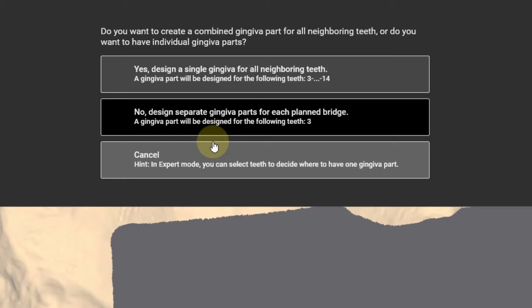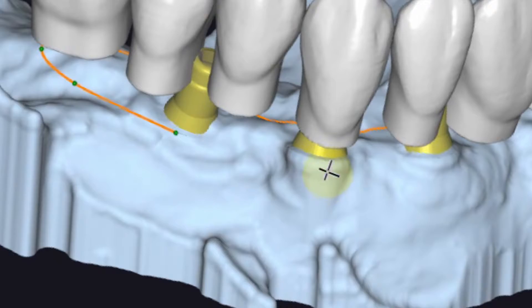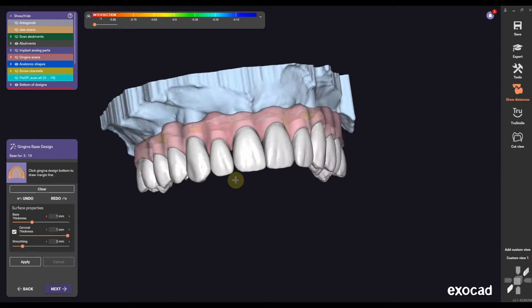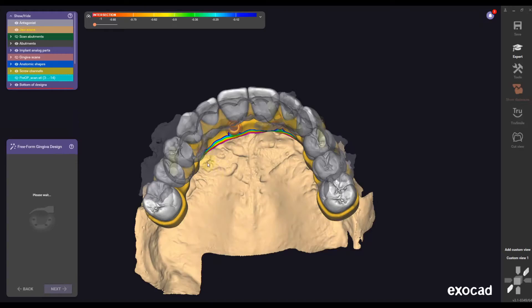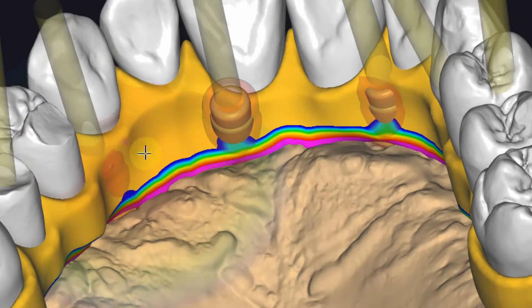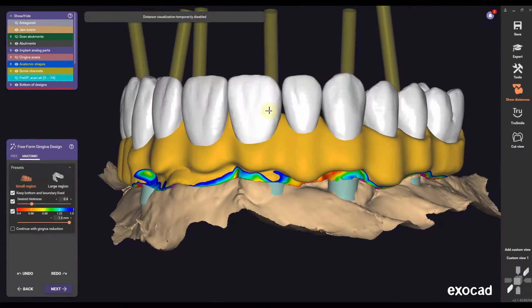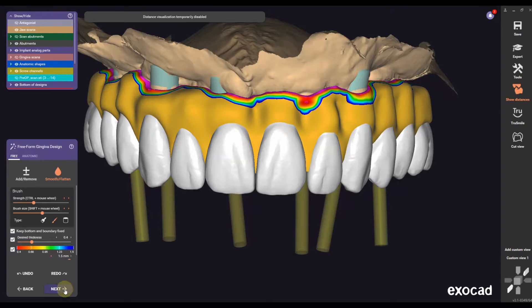Designing the gingival can be very difficult for some people but it's actually very easy. You just have to remember you're not designing a denture — you have to create a basal convex profile, and when you're drawing the outer line of the gingival profile you're going to stay two to three millimeters away from the abutment sides. After this I'm going to move on to the free form of the gingival design. The first thing I usually do is bulk up the lingual just in case the tie bases are sticking out of the design. Then I'm going to smooth everything out while holding the shift key and fix the interproximal emergence profile under the anatomic tab with the small region tool. I'm not concentrating so much on the root design because I have to redefine it in a later step.